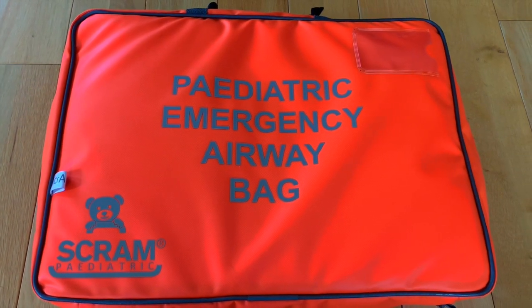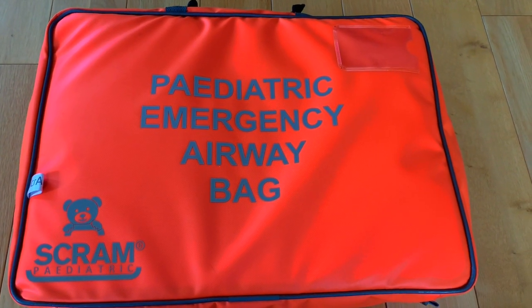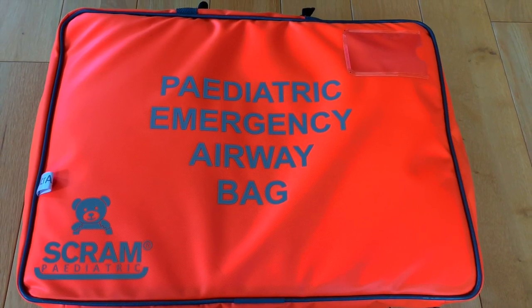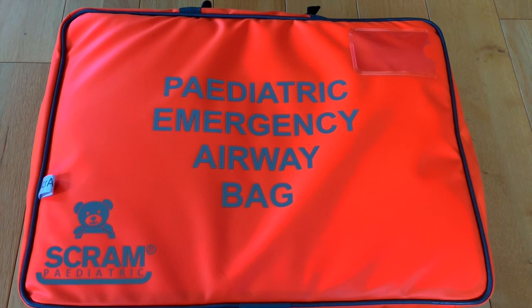Let's start with Pediatric Scram. It is designed for in-hospital and retrieval use and covers a weight range from birth to approximately 60 kilograms.